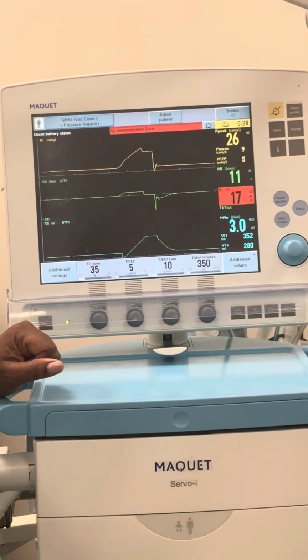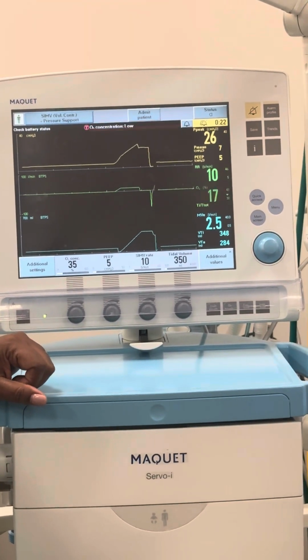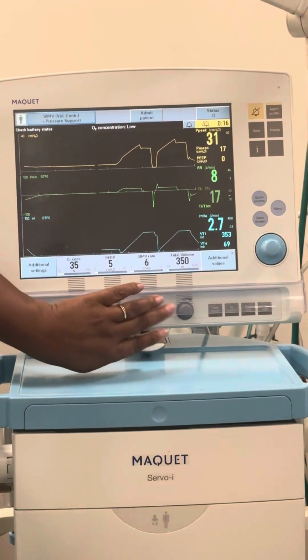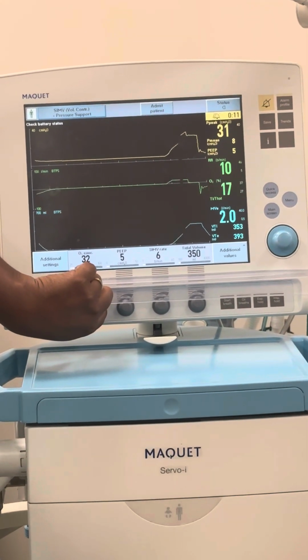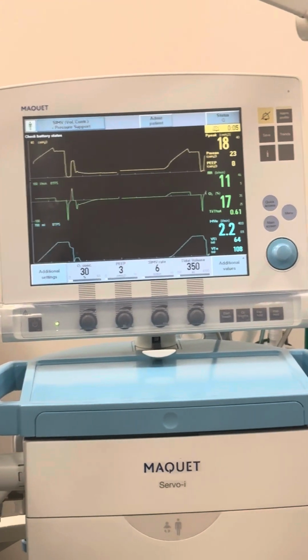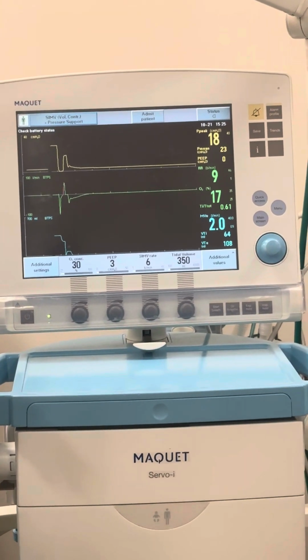All right. That's pretty much the biggest things on that. You would just do the same thing again. When we change it, we're going to wean down what? The rate? So go to 8, go to 6, go to 4, whatever you want. So I wean down the rate. My FiO2 is going down, right? So I've been weaning. My PEEP, I'm going to wean that too. So it's kind of going down a little bit, even on pressure support too, right? Because it's above PEEP. So I'm going to do my weaning throughout the next day or 2 or whatever, right?